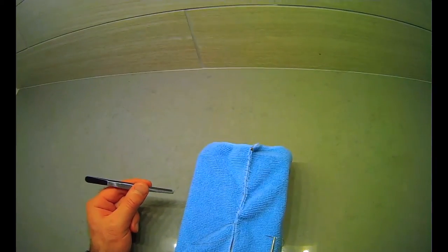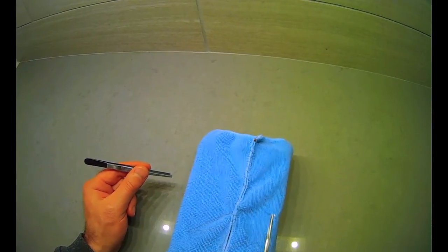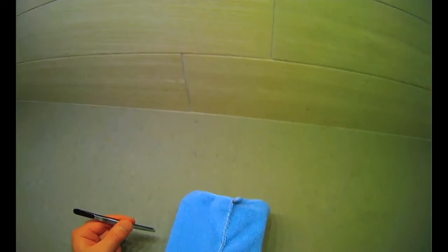And it's true that this towel feels different than human skin, but again, the most important thing in the beginning, and what I would argue is the hardest, is just doing those things that I just did over and over again, not dropping your needle, should you drop your needle, being comfortable reloading it, getting all of those things down to muscle memory.